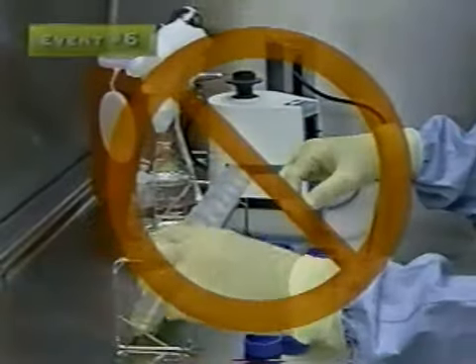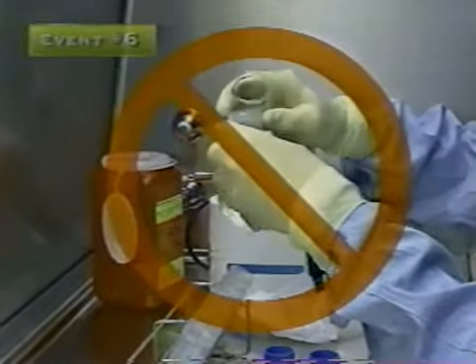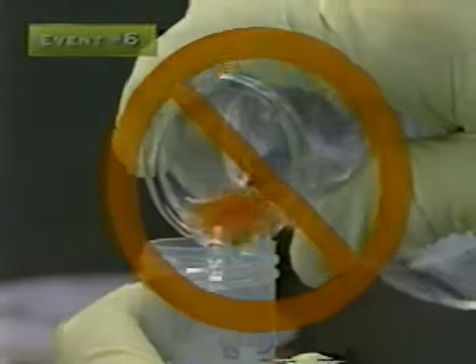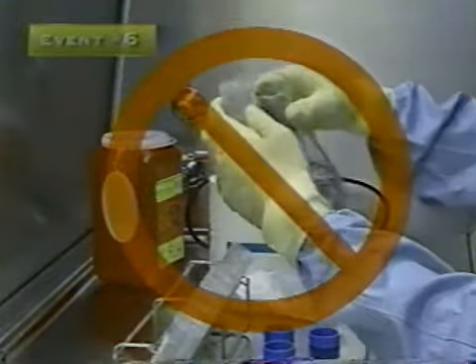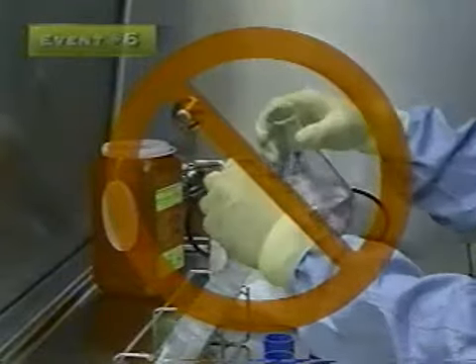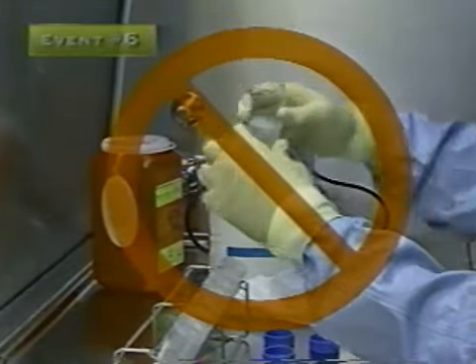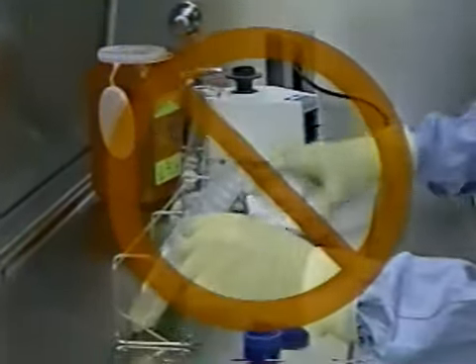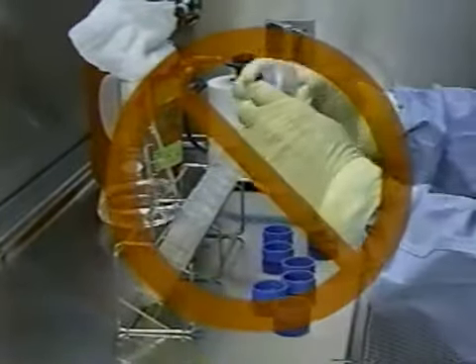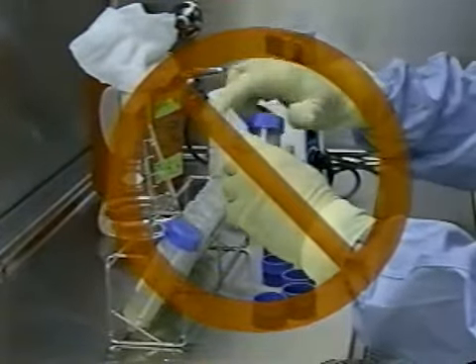Okay, what's wrong here? When the digestant is poured into one specimen-containing tube, a chance exists for splashback from a potentially positive specimen up into the neck of the vessel containing the digestant. This technique provides a mechanism for transfer of organisms from one specimen to another. The direct lip contact of the two containers also facilitates transfer of organisms from one vessel to another. Not only must you think of protecting your specimen or testing sample from being contaminated with organisms, but you must also guard against contaminating your reagents as well.